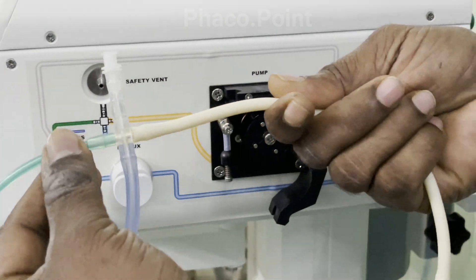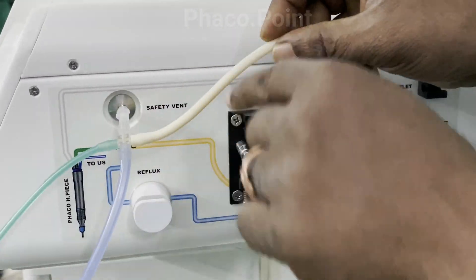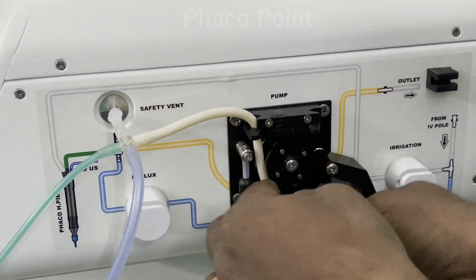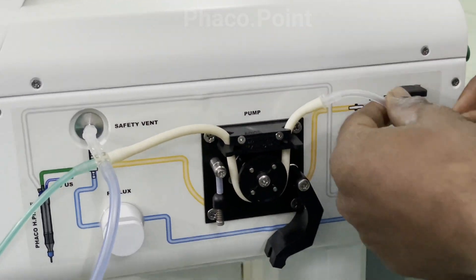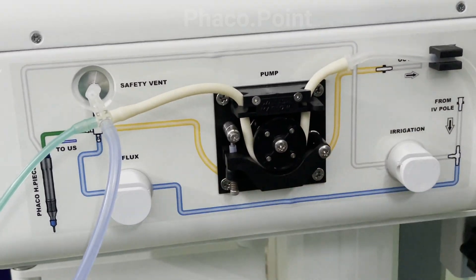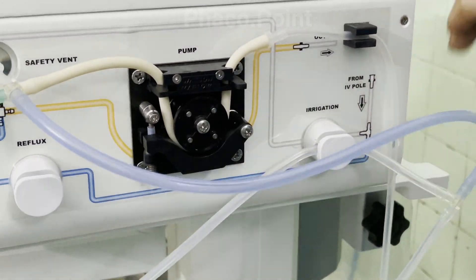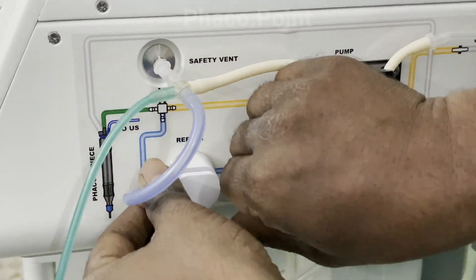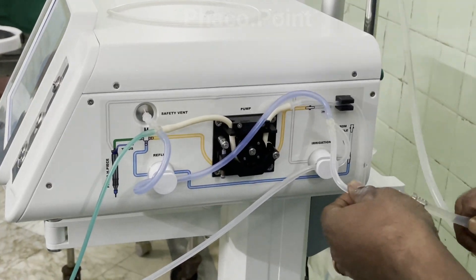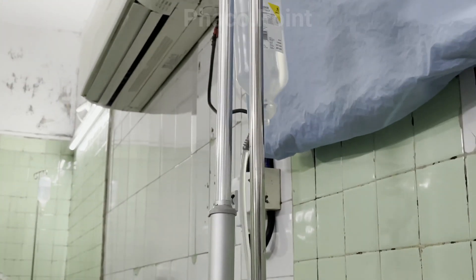First we connect the safety vent connection and clamp it. This is the LOK tube — it is placed into the pump, turned and connected on the other side to the outlet tube, then the pump is closed. The irrigation pinch tube goes to the irrigation pinch valve, and the reflux tubing goes to the reflux valve. Finally, the IV connection is made.